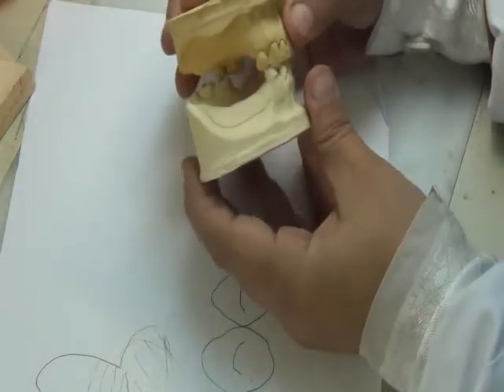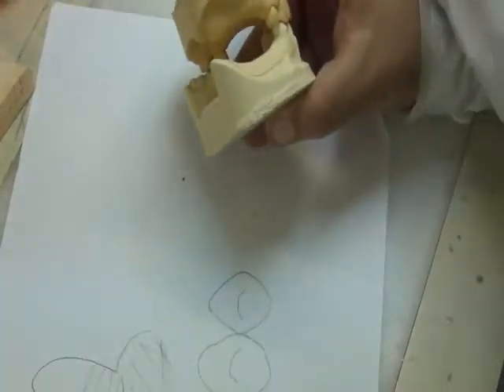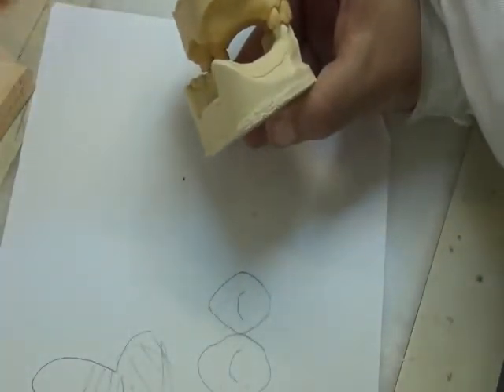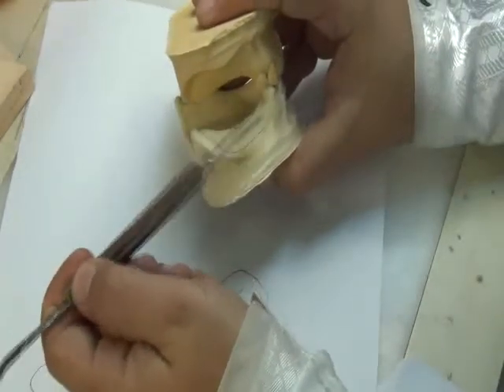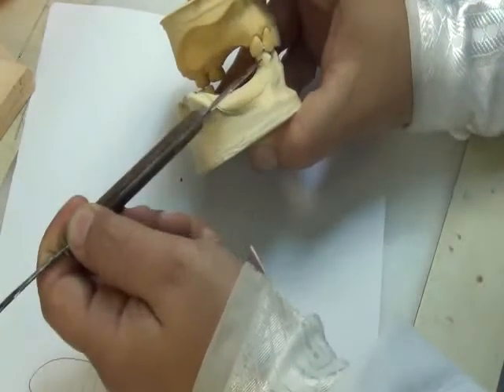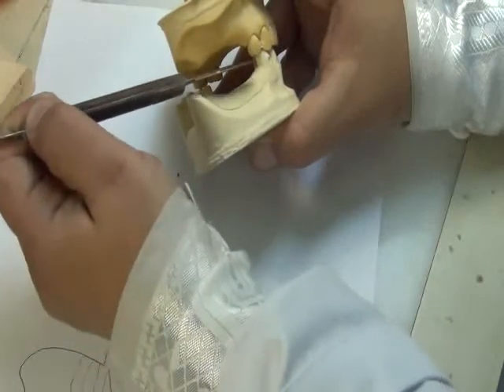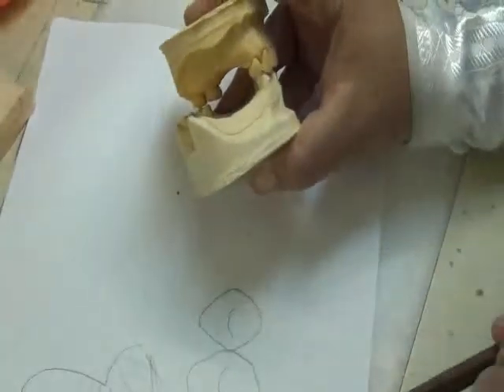This is okay, but I have a problem. Even when the patient is biting on his regular bite, how high do I make my wax on this area? Because I have a wax rim here and a wax rim here. Yes? I have two wax rims, one here and one here. But what is the inclination of my wax? Should I incline it like this or like this? Here I need to use the Fox plane.